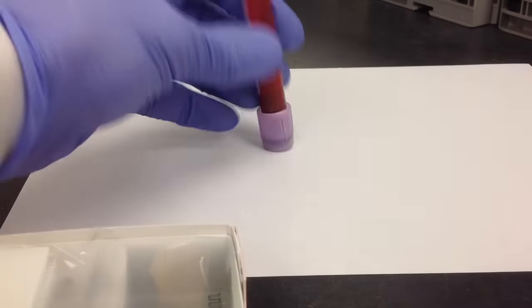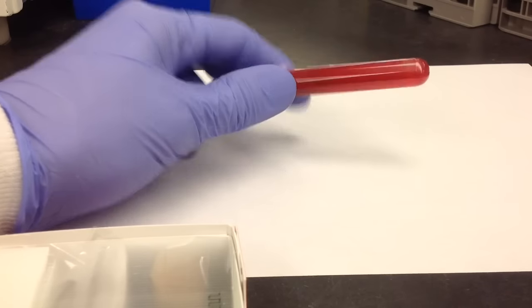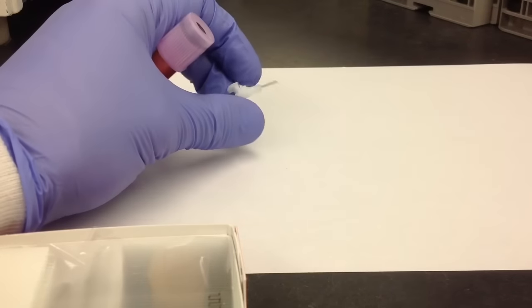You are also going to need some anticoagulated blood, preferably EDTA, and I'm using a cap piercer to make the blood drop.